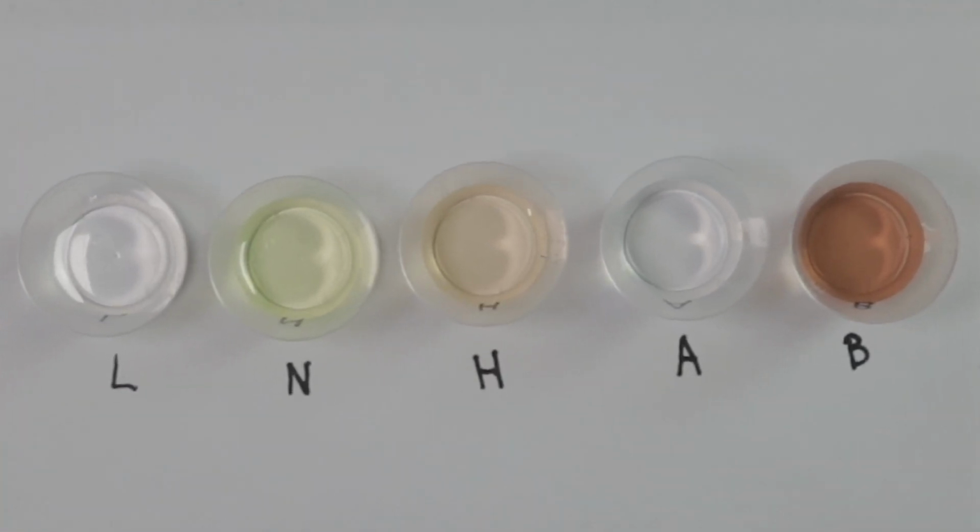You want to get ready to pause the video. As soon as the samples come back in view, they're going to zoom in, and you're going to want to open up the urinalysis assignment that's posted in the lab folder. For your first question in that assignment, write down the color of the 5 different samples. Then you'll use some information from a table that's posted to answer the rest of that question.